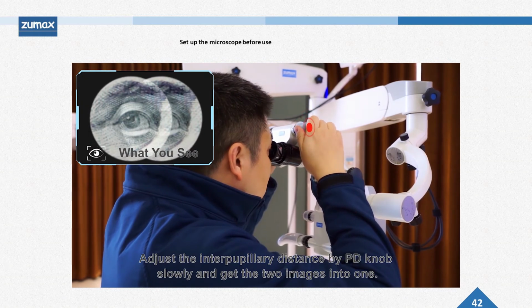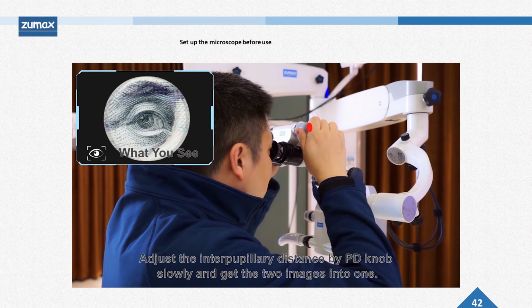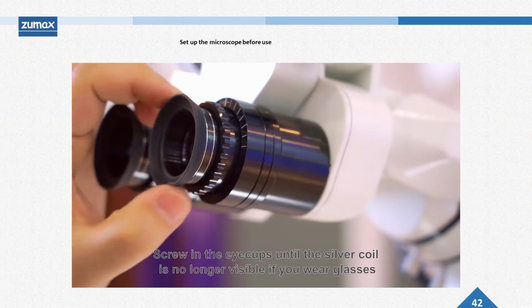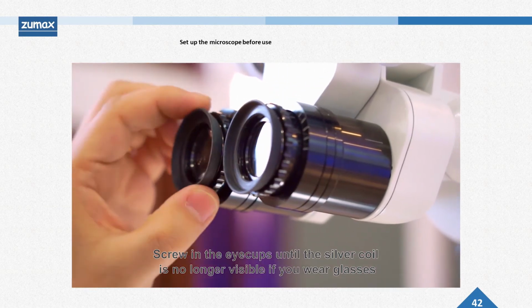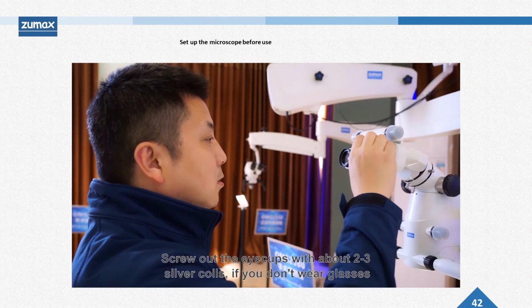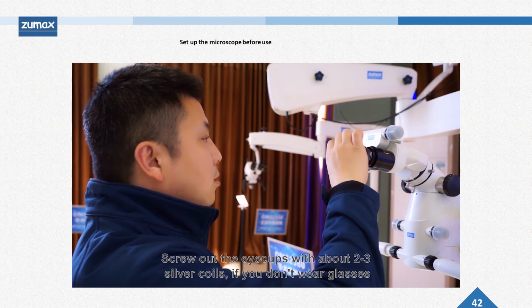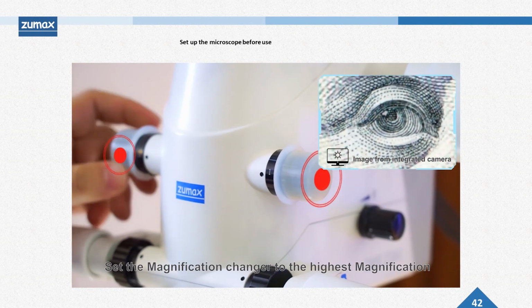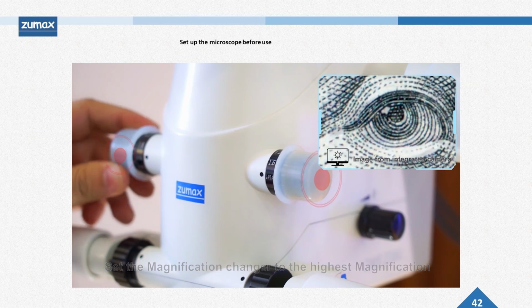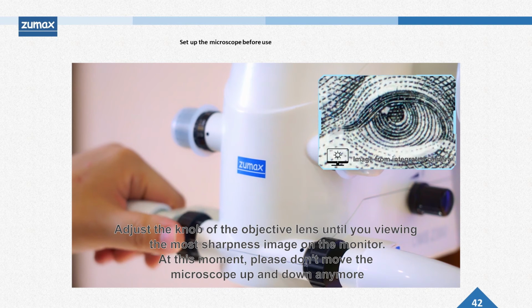Adjust the interpupillary distance by the PD knob slowly and get the 2 images into one. Screw in the eye caps until the silver coil is no longer visible if you wear glasses. Screw out the eye caps with about 2 to 3 silver coils if you don't wear glasses. Set the magnification changer to the highest magnification. Adjust the knob of the objective lens until you view the sharpest image on the monitor.